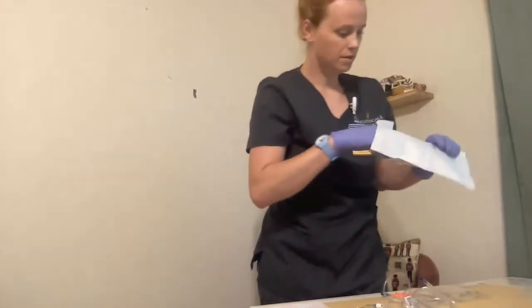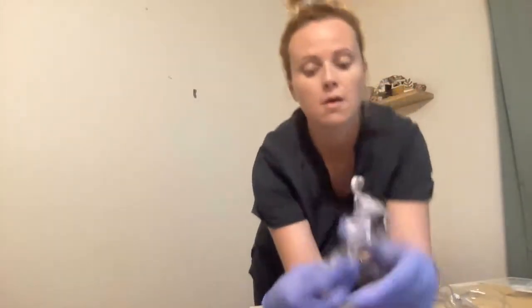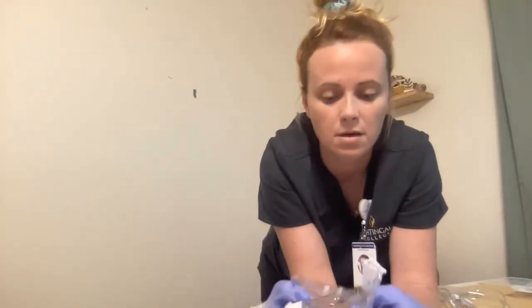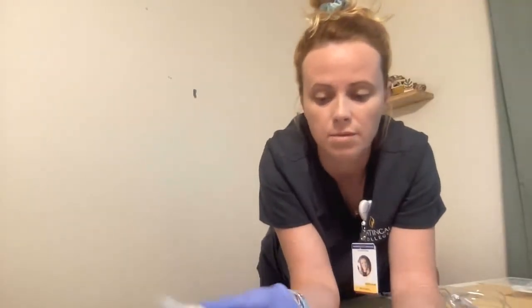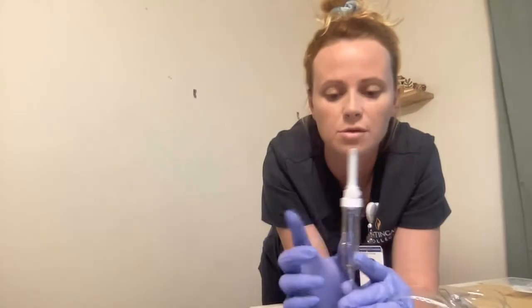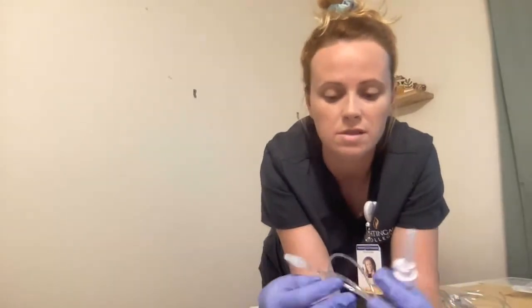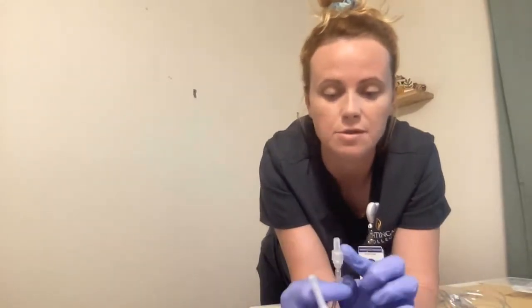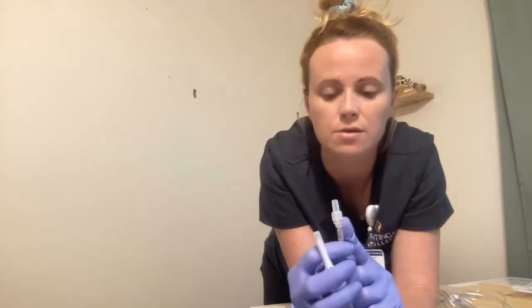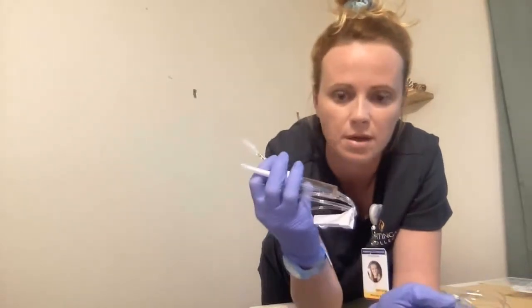The secondary tubing has the same parts: spike end, drip chamber, roller clamp. The only difference is that the adapter end on the secondary tubing hooks into my Y port on the primary line. So this is the piggyback tubing.